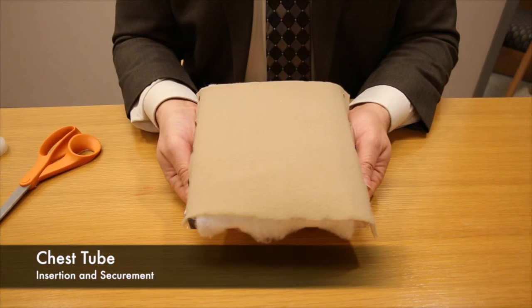Let me show you what else we're talking about. Simple little models, not too difficult to build, but this is our chest tube placement model.